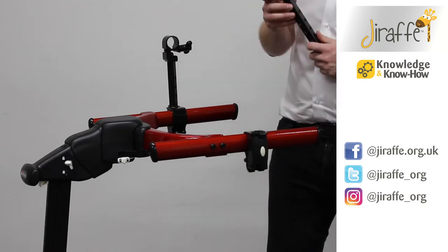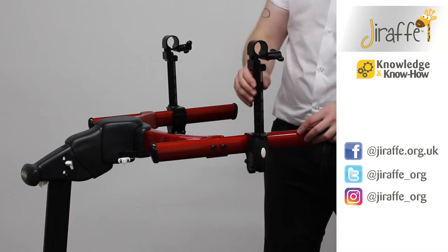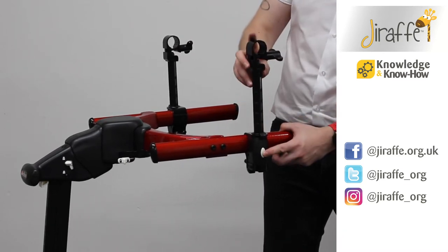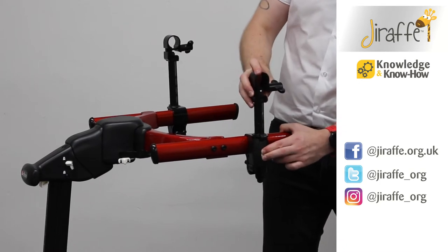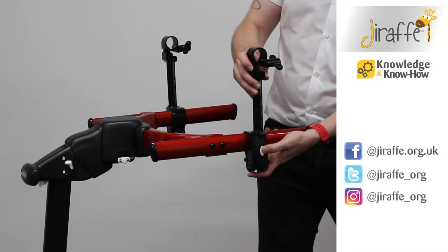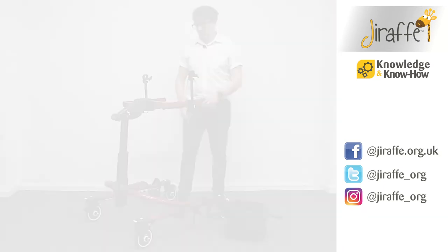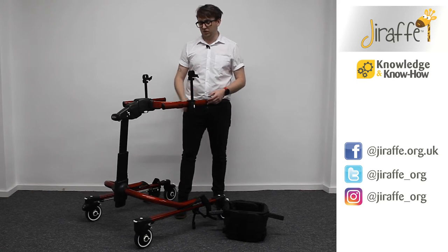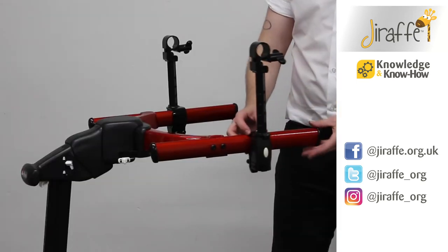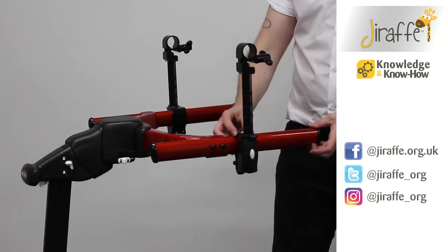With the fitting, we are going to put it directly into the groove at the top of the clamp, and we can press the white button to adjust the height. If we wanted to move the clamp along the frame itself, we can simply loosen the wing knob and move it anywhere along the frame.